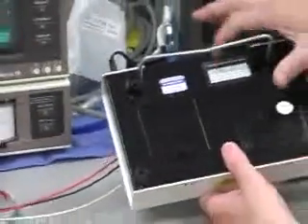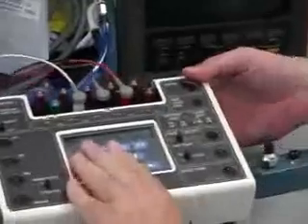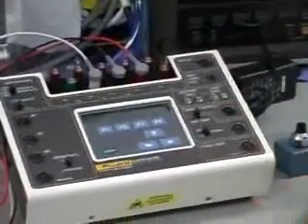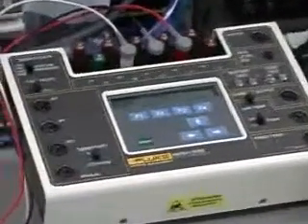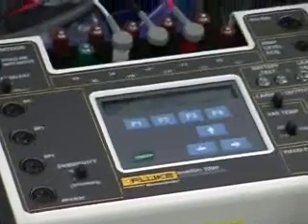And this is just the location for the EPROMs. So you've got the full load, the full cardiac output. You've got option 1, so you're ready to go. I think you're going to get a lot of good service out of this. It's a good rugged unit with a wide range of features.